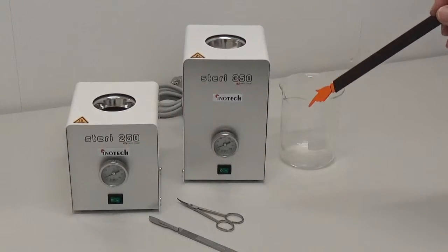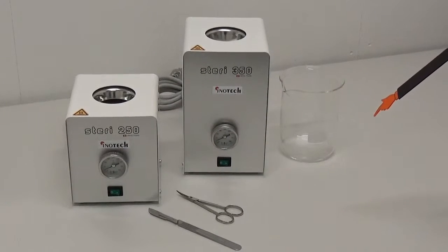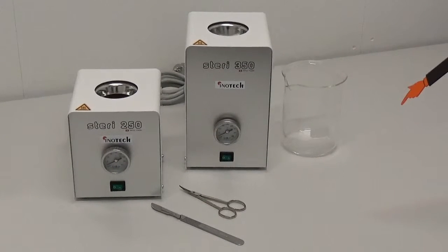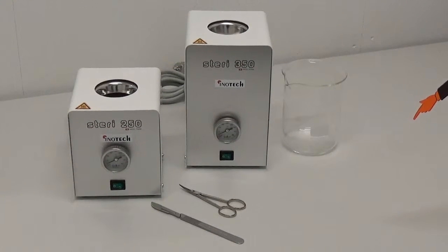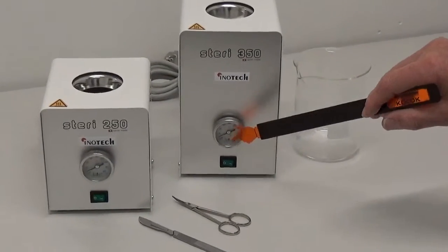All instruments contain a high performance heating element, a high-precision thermostat, a temperature limiter, and a built-in thermometer.